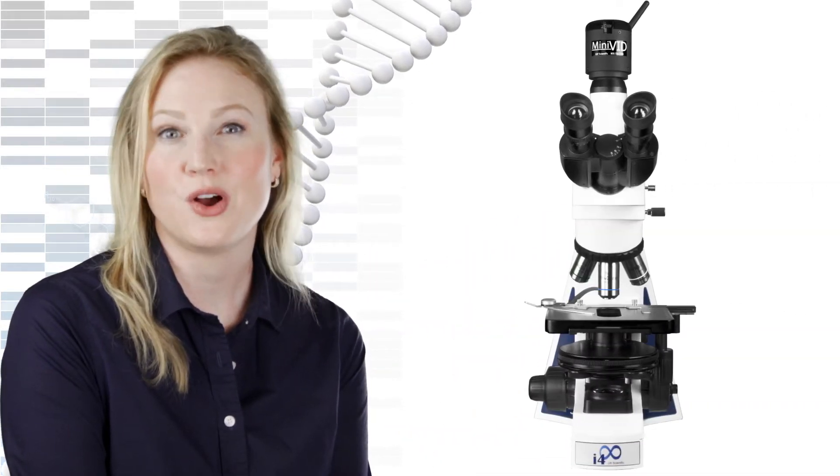the I-4 Semen Evaluation Lab Scope is easily customizable to suit all of your laboratory's demands.